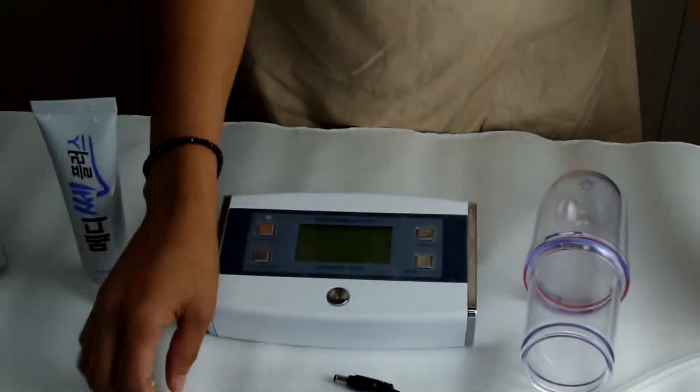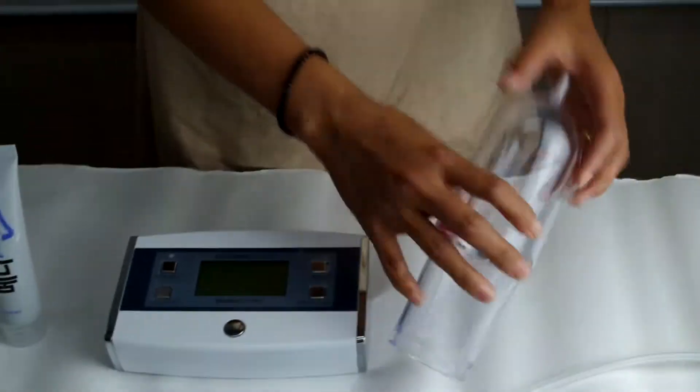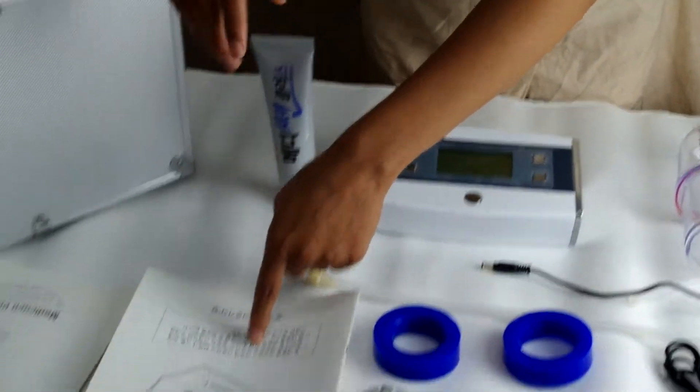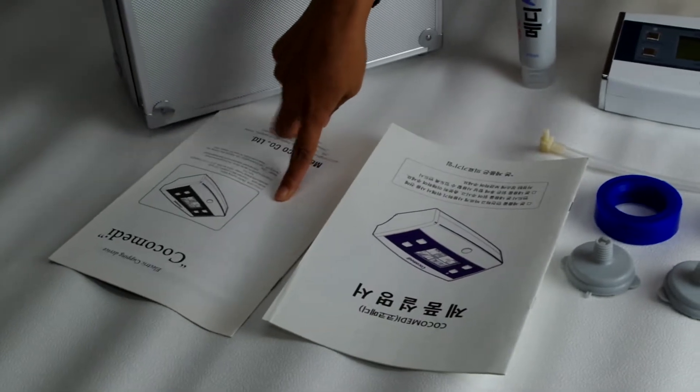The hose, the charger, the cylinder, the gel, the Cocomedi manual in Korean, and the English manual for foreigners.